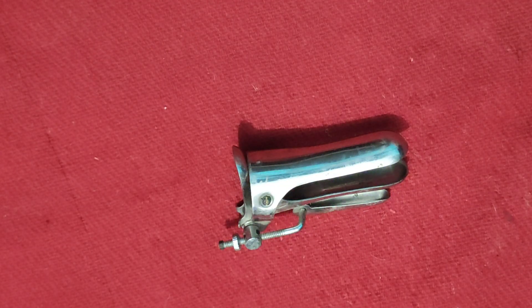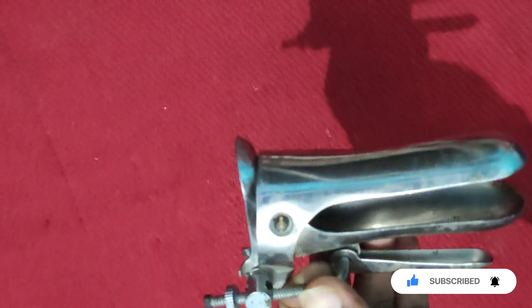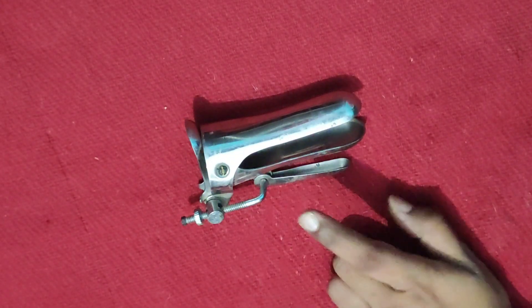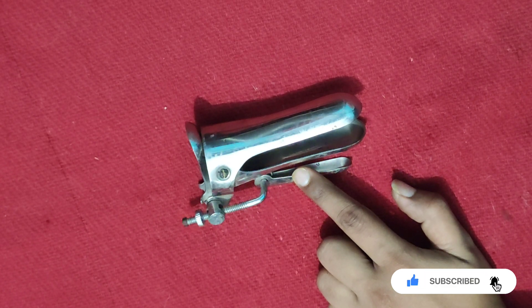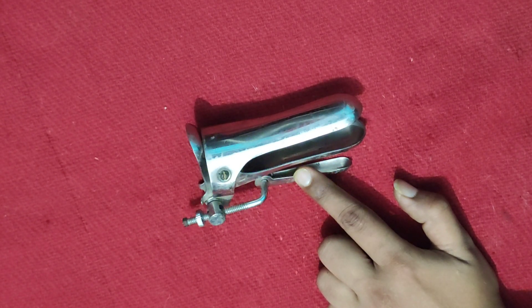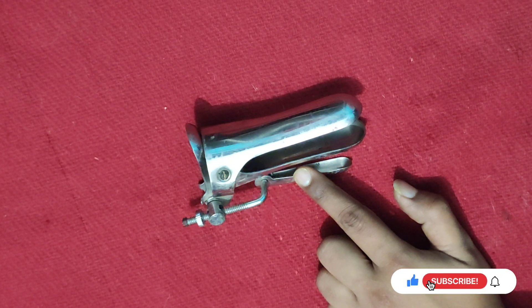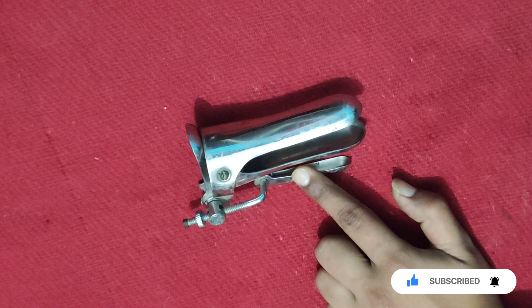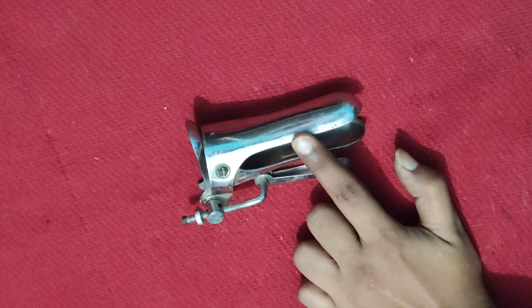Good morning student. This instrument can be asked to you via your practical examination of obstetrics and gynecology. This instrument is known as Cusco bivalve self-retaining vaginal speculum. They can ask you questions like: identify the instrument, its full name, description, and uses. So you have to tell that its full name is Cusco bivalve self-retaining vaginal speculum.